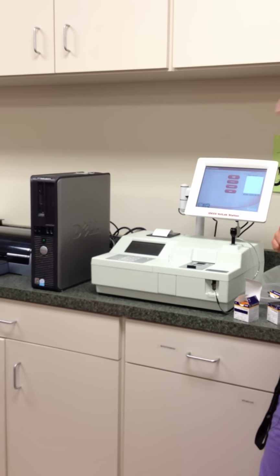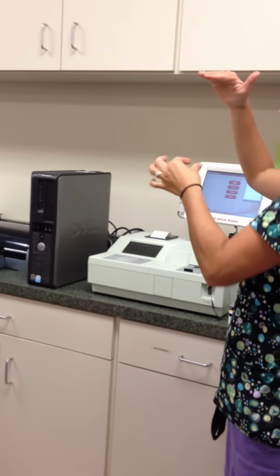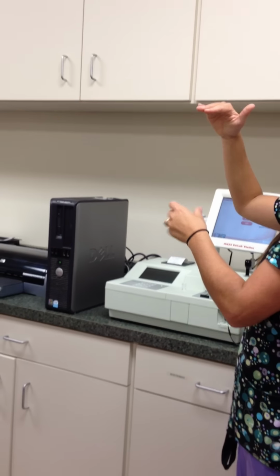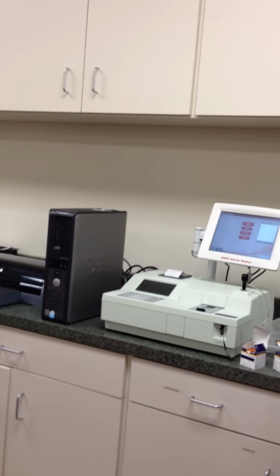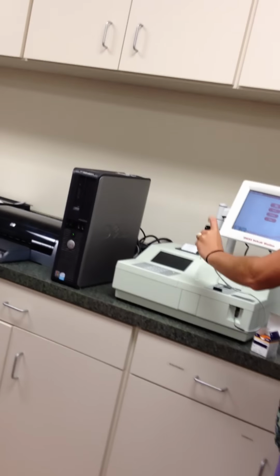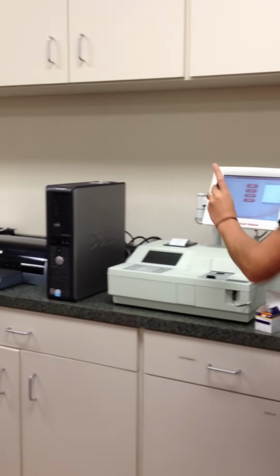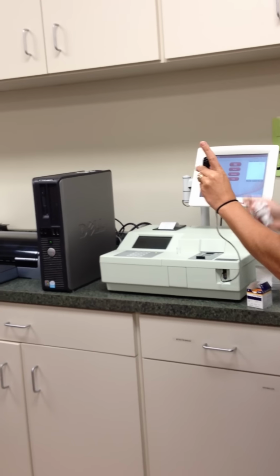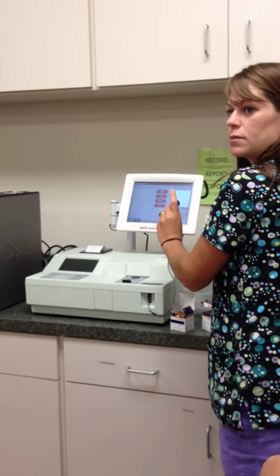Don't hold it. Press and release, you're going to get 1 beep. It's going to start to suck up your sample, so keep it in your sample. Once you get 2 beeps, you're going to pull it out of your sample, and you're going to grab a chem wipe. Okay? So you're going to put it in, press the button, release. It's going to go beep, suck up the sample, beep, beep, pull it out of the sample, and then it's going to suck up a little bit more and go beep, beep, beep. Then we're going to wipe off just the sides and stick it back in.